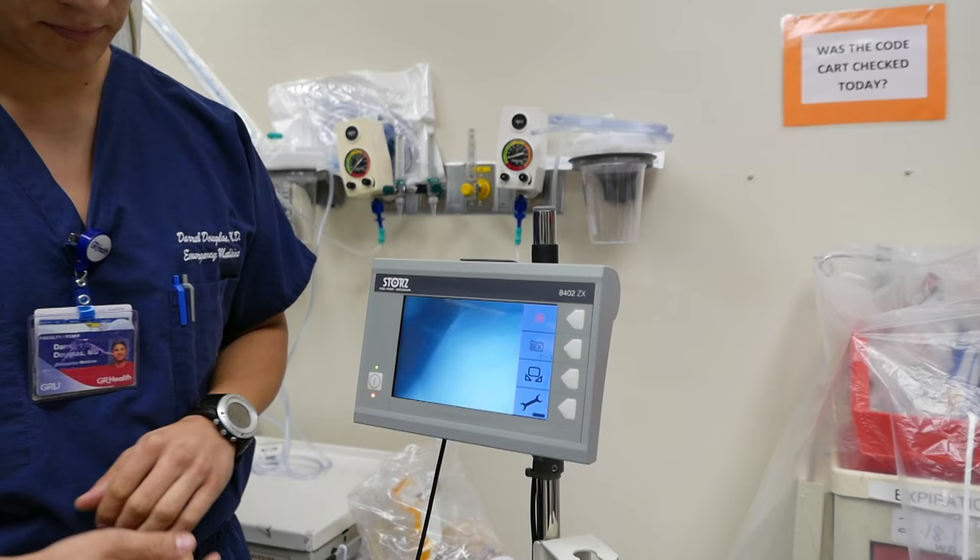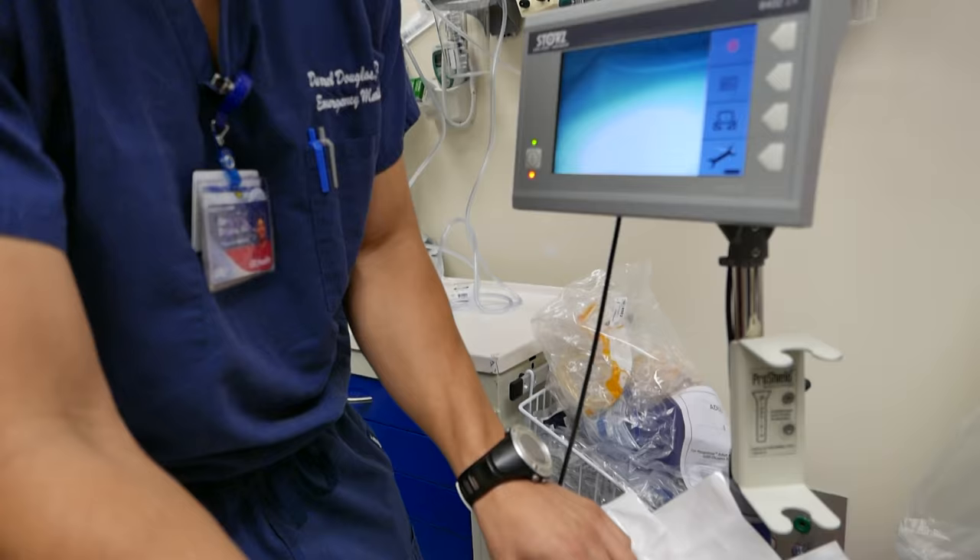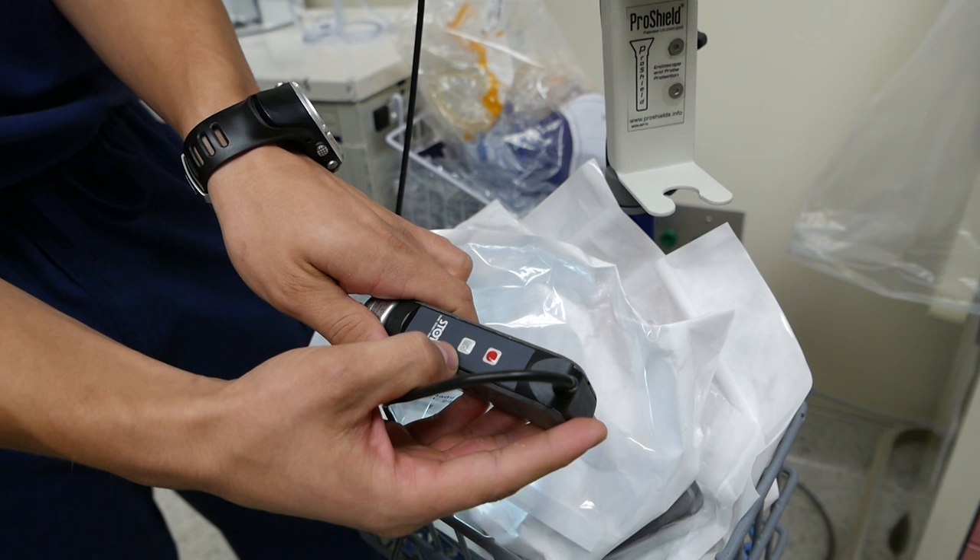As far as the actual handle, there's some knobology on the back of it. There's also the record and the picture button on the back of the handle here if you'd like to record from there.